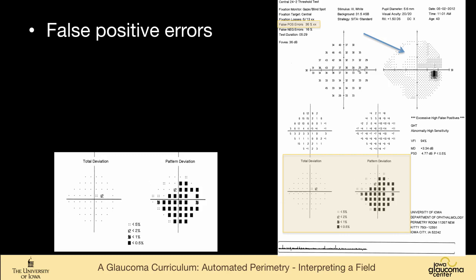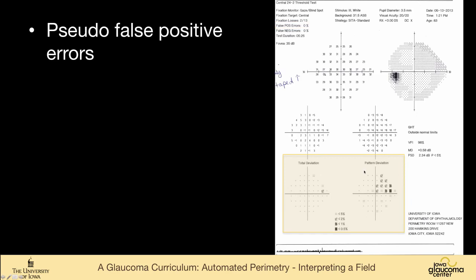Just another example, the same pattern. You notice here at the blue arrow at the top that there is a white area. I call this a dreaded white scotoma. It's clearly not a scotoma, but you can see that these threshold values are astronomically Clark Kent kind of high, 46, 45, 36% false positive errors. So this is a totally uninterpretable visual field. If you try to make any sense out of all this, you're just wasting time.